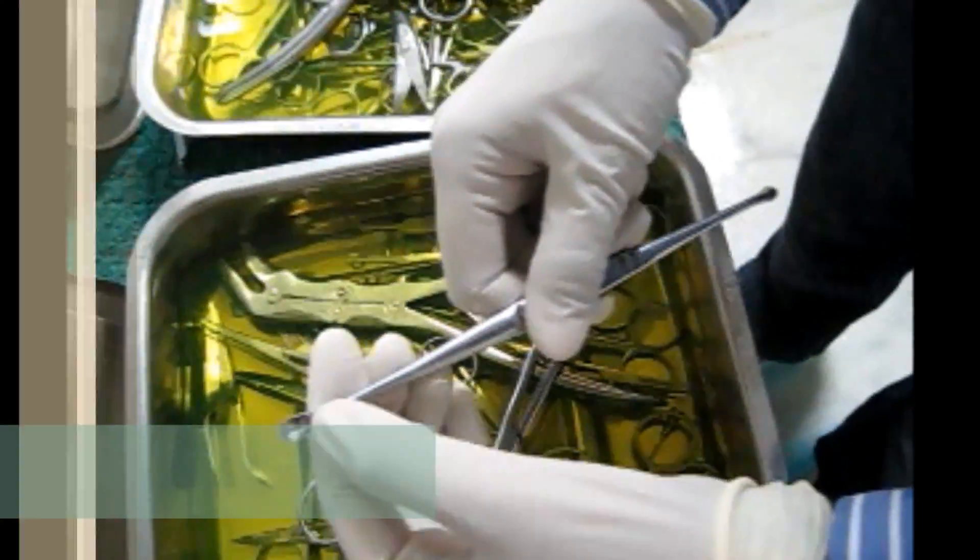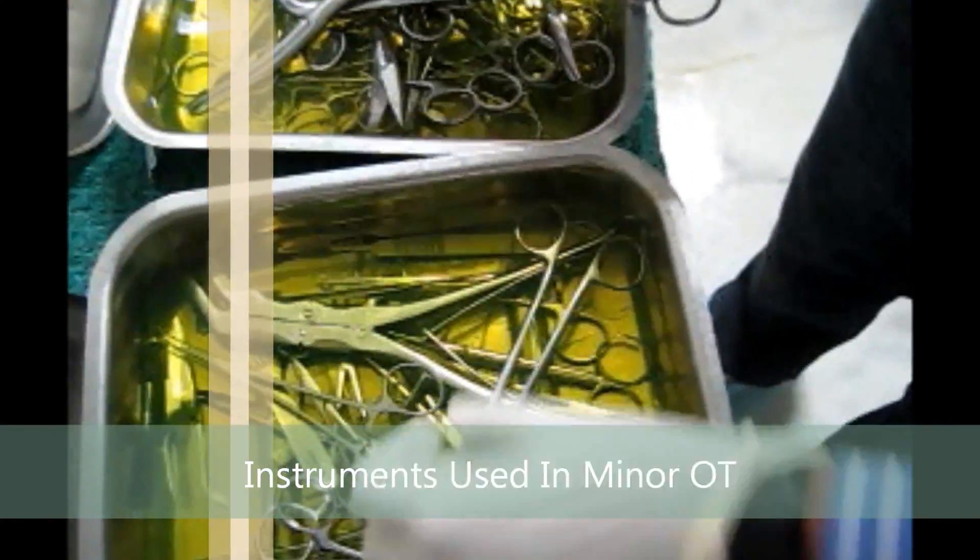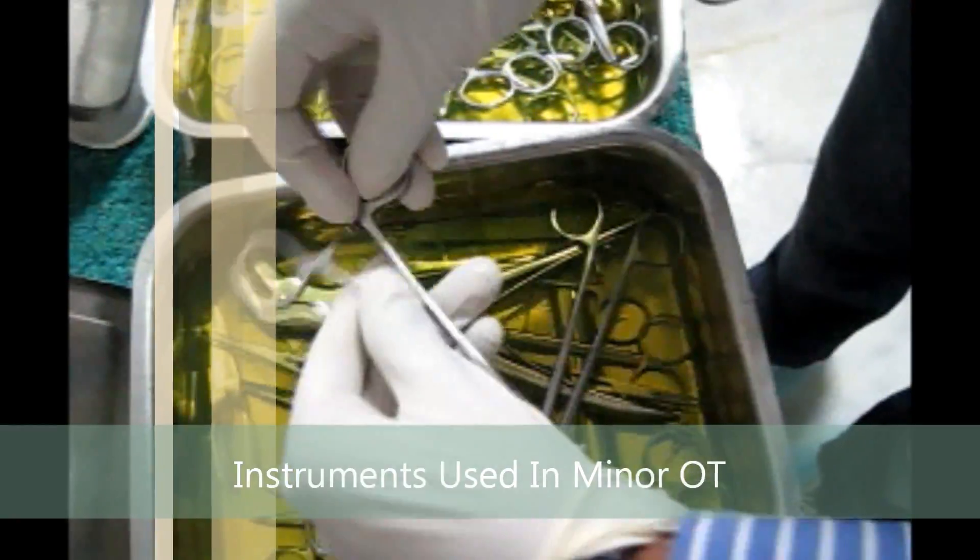This is the Curette. You can see a small curette and a little bigger one.